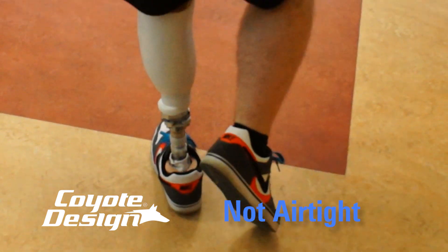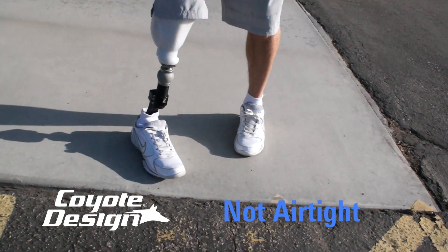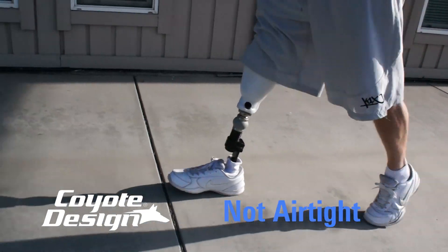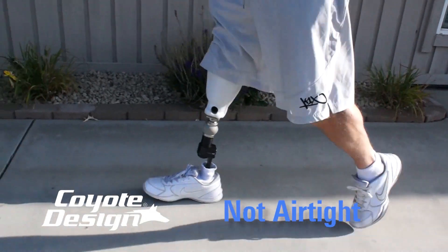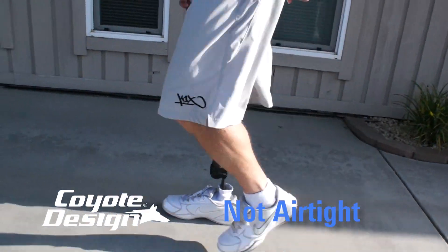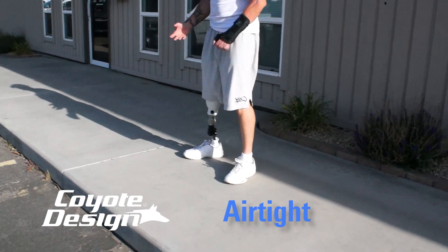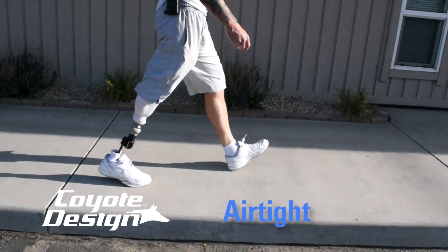And it would — yeah — I'd get tired of that. That's exactly how it was before. It feels like I want to take it off and put some socks on. It's driving me nuts. Not that it's going to fall off, but I can definitely feel it — like it's not gripping on as good to the bottom. That's exactly what the old one felt like. It's amazing how much tighter that makes it — it just stays on so much better. Yeah, that feels much better.